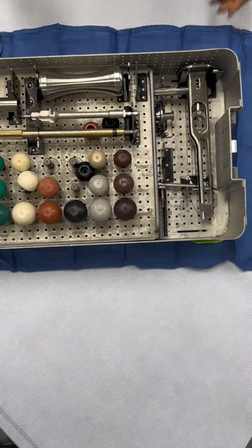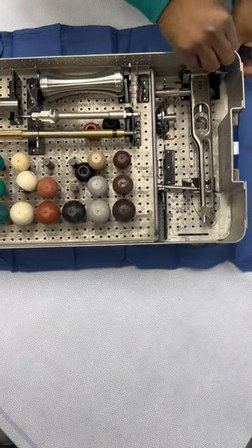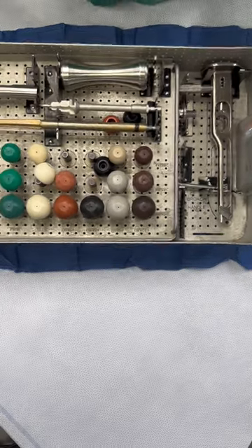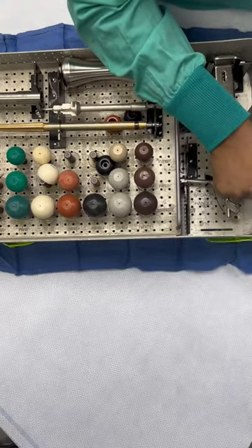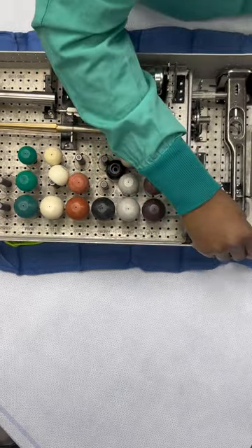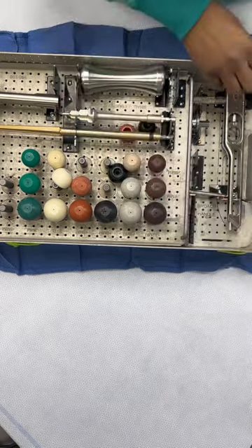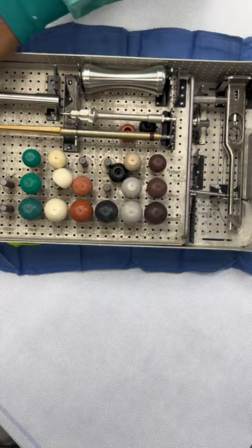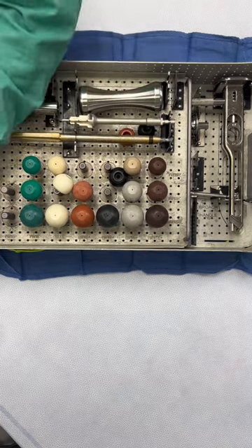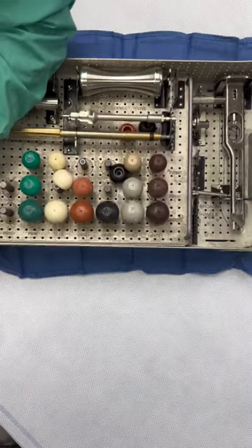So the next thing I just did was put in my tray. Remember, first thing first — make sure all your instruments are clean. It looks like I did not place those edges well. I've forgotten the code name, but if anyone remembers please put it down in the comment section, or while I'm editing I'll write it under so you guys can get to know the name.